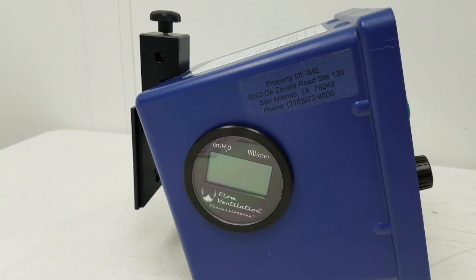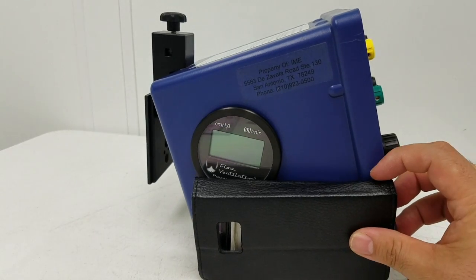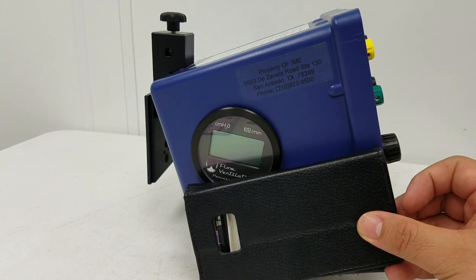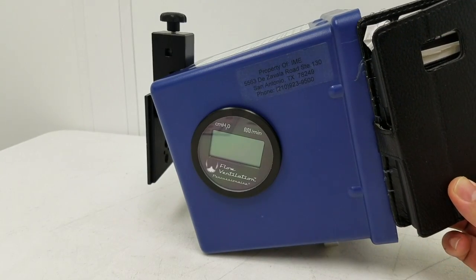The device is very compact — roughly about six to seven inches or so, about the size of a phone wallet case.